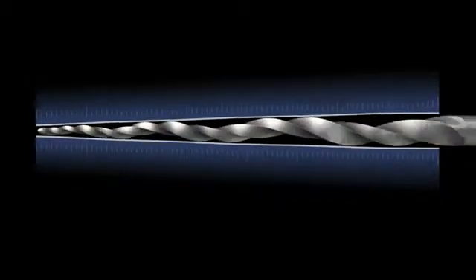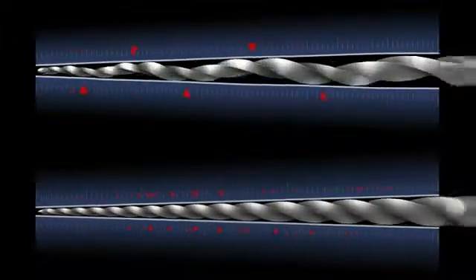Compared to a fixed tapered file with a centered cross-section, the variable taper design of ProTaper Next minimizes the risk for broken instruments.